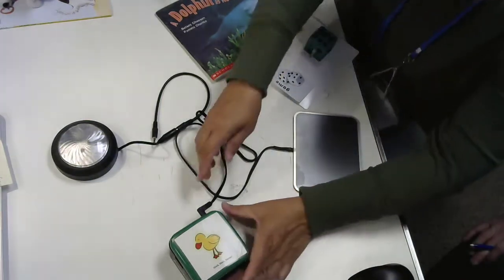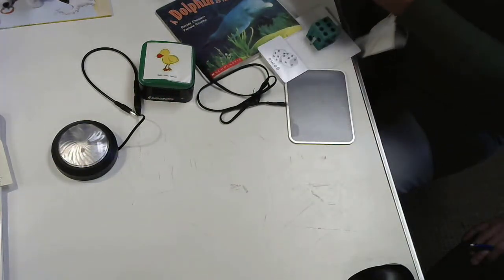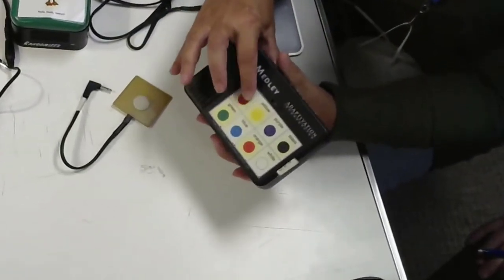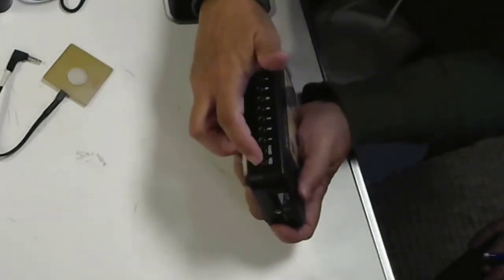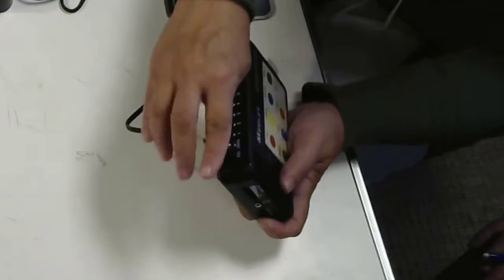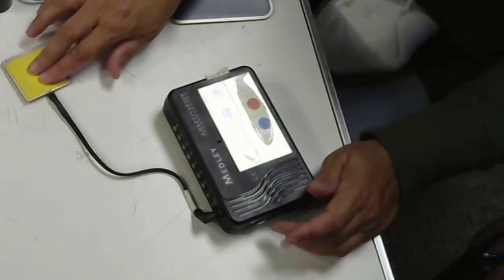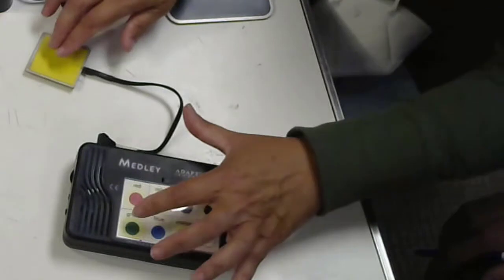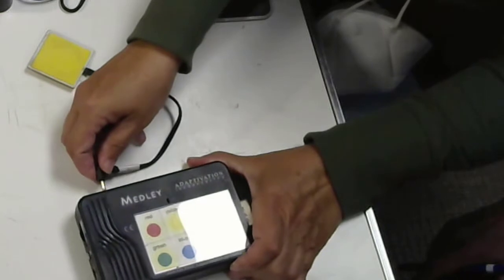I also wanted to just quickly show you another device that has the capability of both sequencing and randomizing. This is the Medley. The Medley has a keypad. Hello, this is a Medley. So we can do it that way, but it also has a jack, one for sequencing, one for randomizing. So now as I plug in my switch, using this switch is like pressing the top. So it's going to go in order. Move to purple. There it is. Go to black. Green. And then with random, I'm going to move my switch to the random jack.